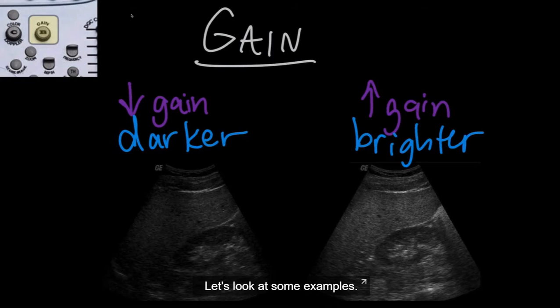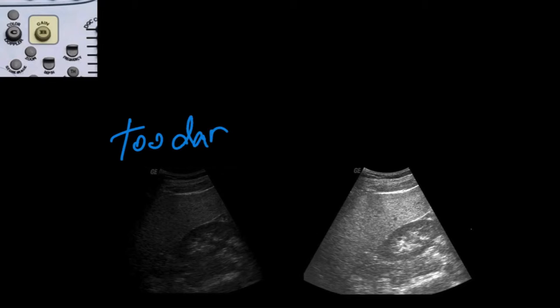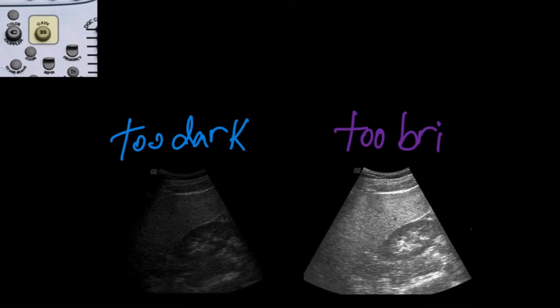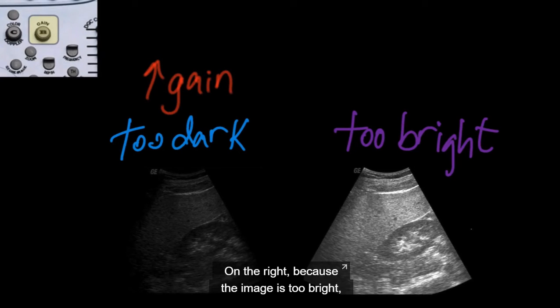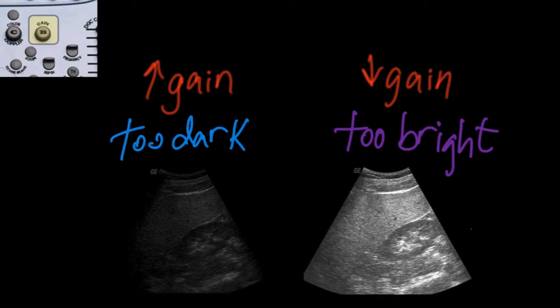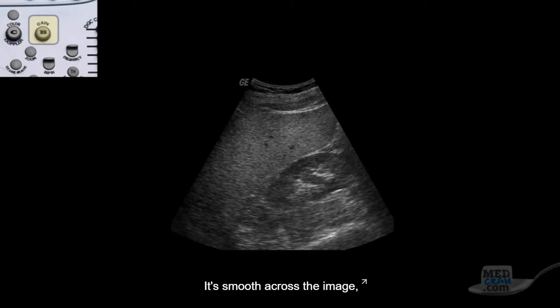Let's look at some examples. On this image on the left, it's too dark. You're not able to fully see everything on the screen, where on this image on the right, it's too bright. So on the left, because the gain is too low, you would need to increase your gain. On the right, because the image is too bright, you would need to decrease your gain. And if you do that, what you see is that your ultrasound image has the correct gain. It's smooth across the image, it's not too bright, it's not too dark.